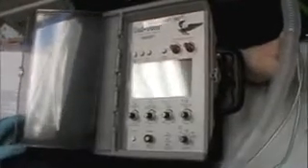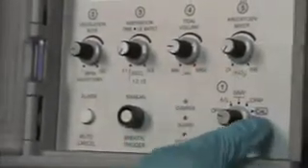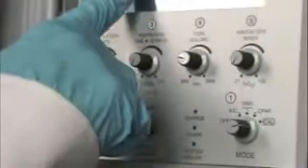The manufacturer makes it pretty easy for you to figure out exactly what steps you need to go through to start the vent. If you just follow the numbers 1, 2, 3, 4, 5 on the display, when you turn the machine on, the first thing you should do is calibrate it. You flip this knob all the way over to the calibration feature, and on the screen it'll say mode cal, and then cal OK, so now you're good to go.